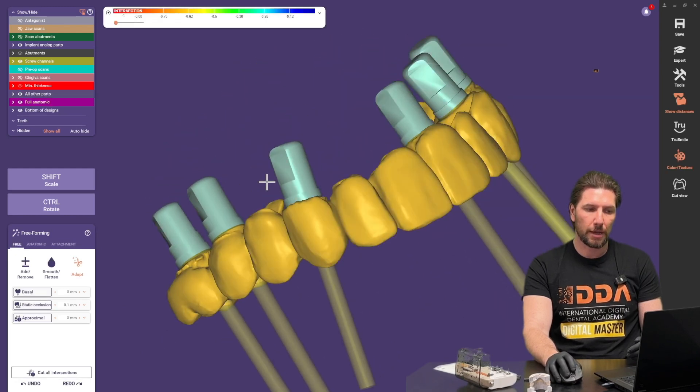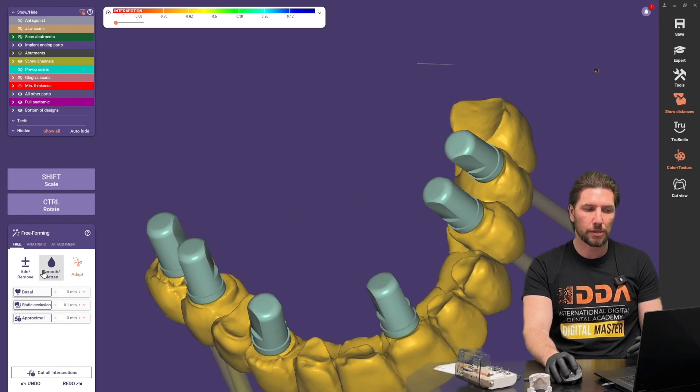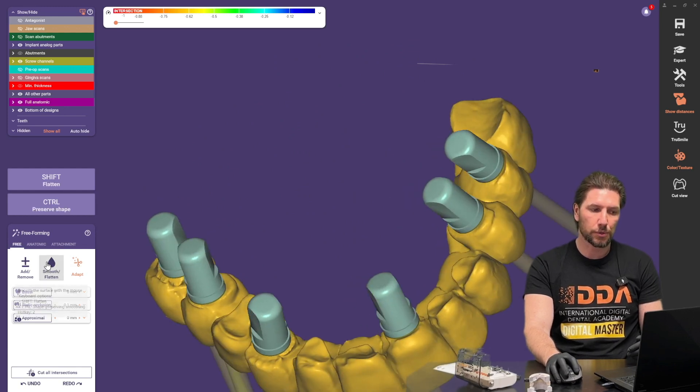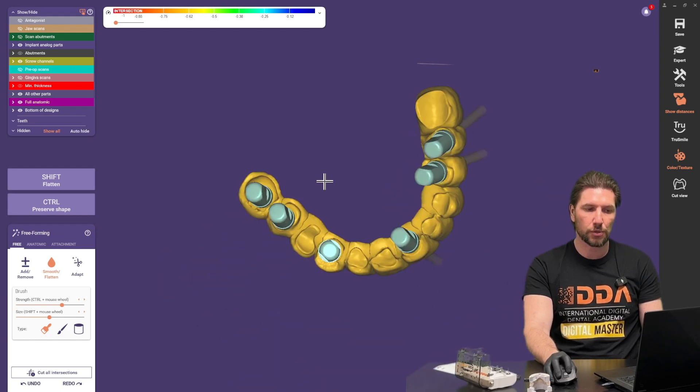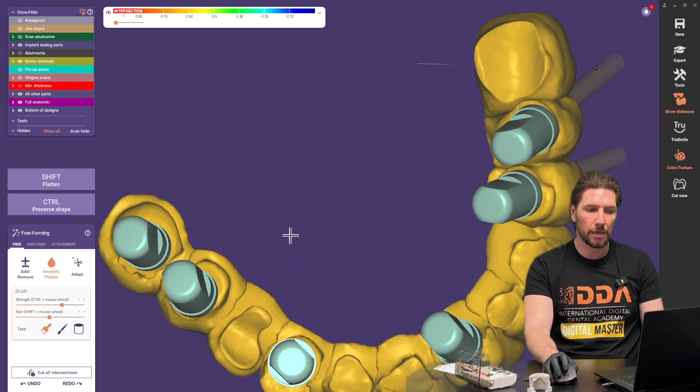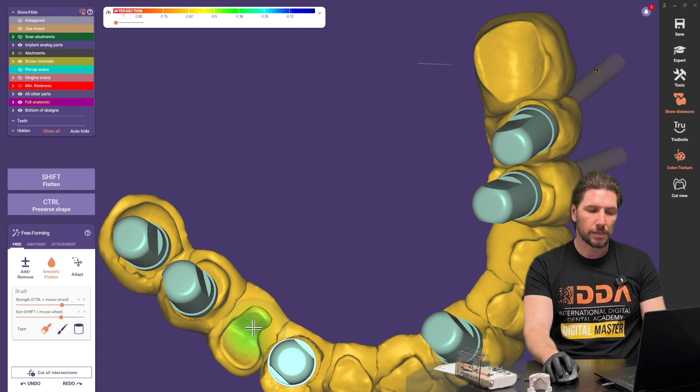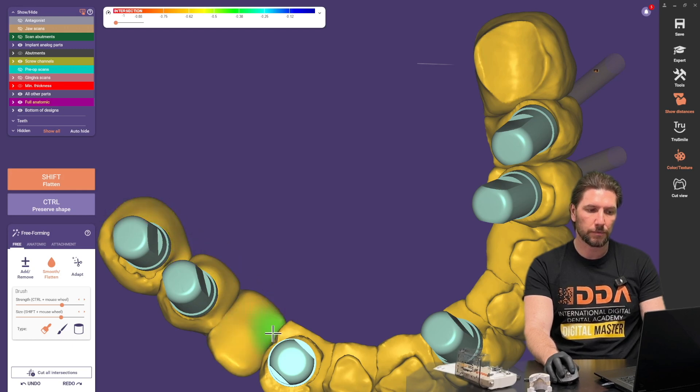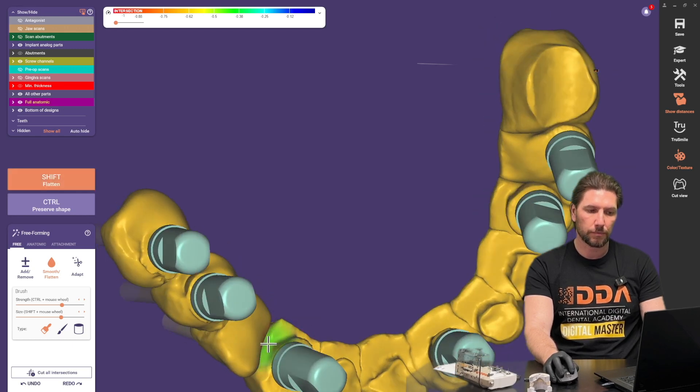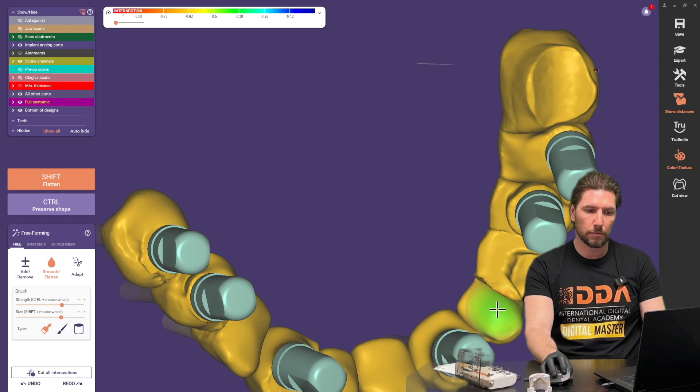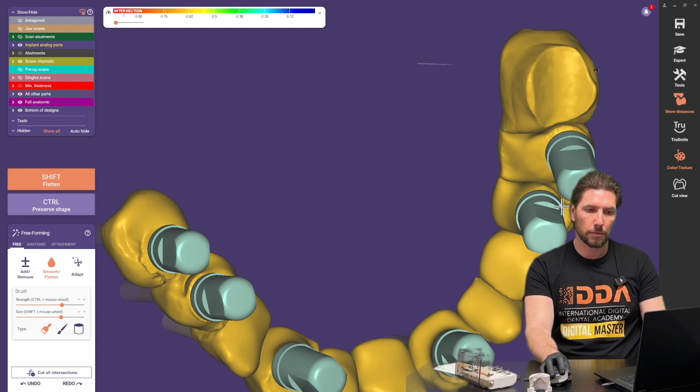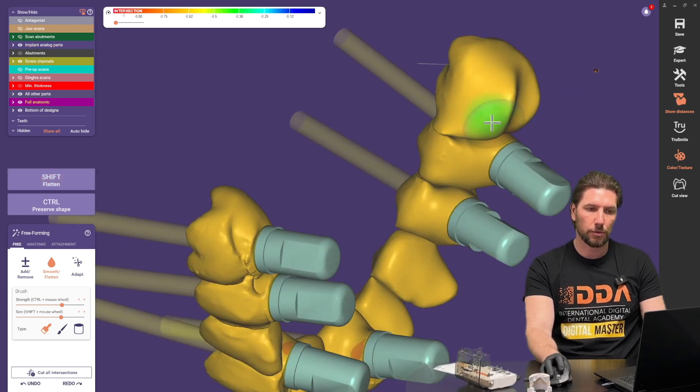So now we've built those out a little bit and adapted it to the gum the next stage is to go to smooth and I personally like to make this really super quick and easy by holding down the shift button but making the scale of this quite large. So the size here this will mean that we can just very quickly and easily just quickly click around to smooth out all of these bits of ugly data that's sticking through.